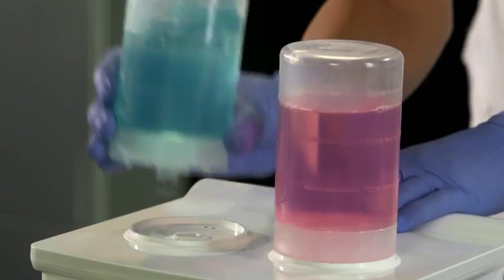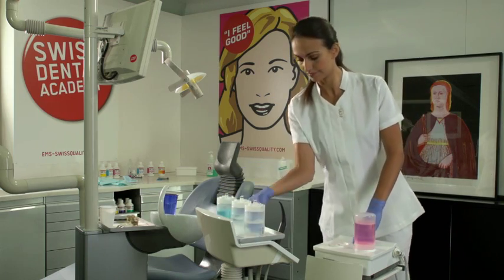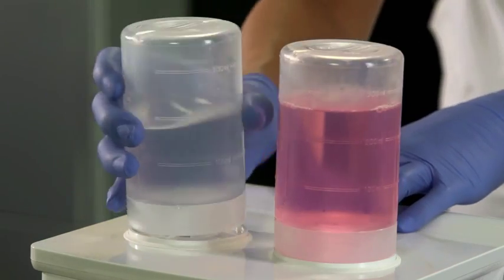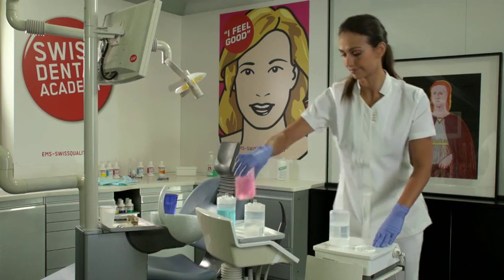To wash out the liquid circuit, replace the two bottles of antiseptic solution with two bottles filled with 200 milliliters of distilled water.